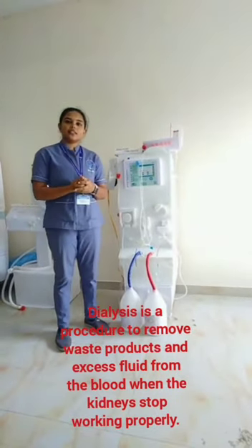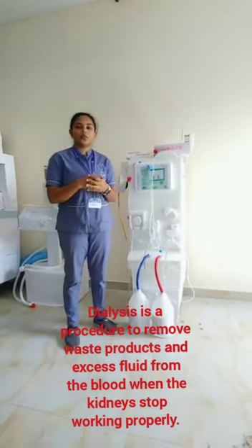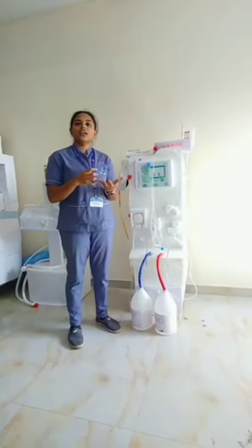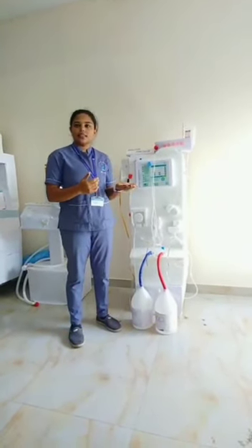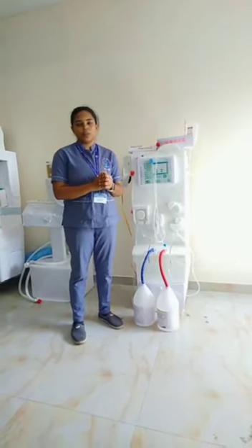Dialysis is a procedure where the unwanted waste and the excess fluid are taken out from the blood using a dialysis machine when our kidney is not working properly.